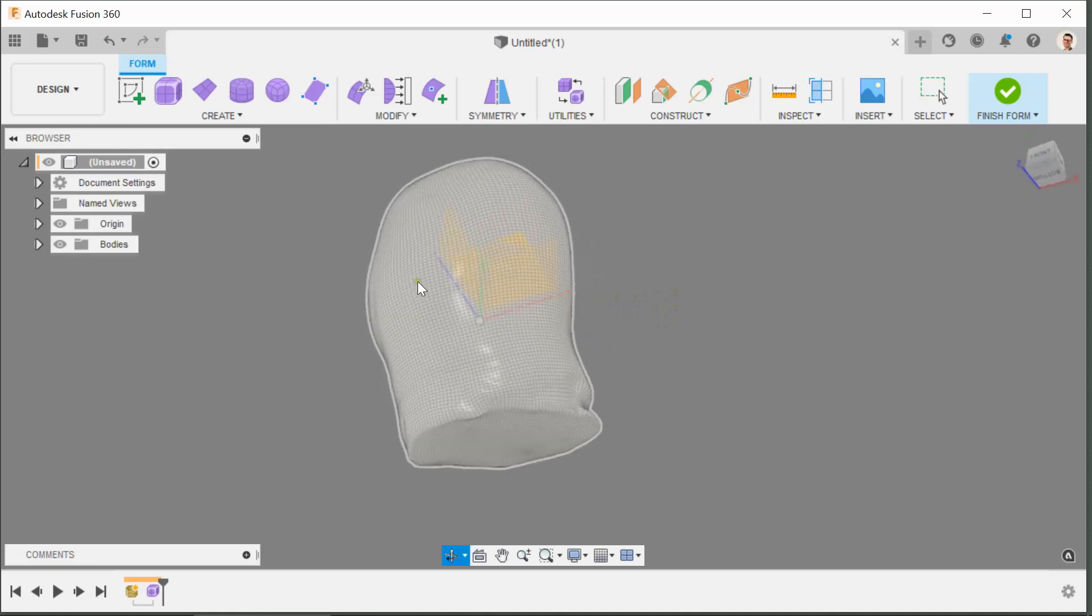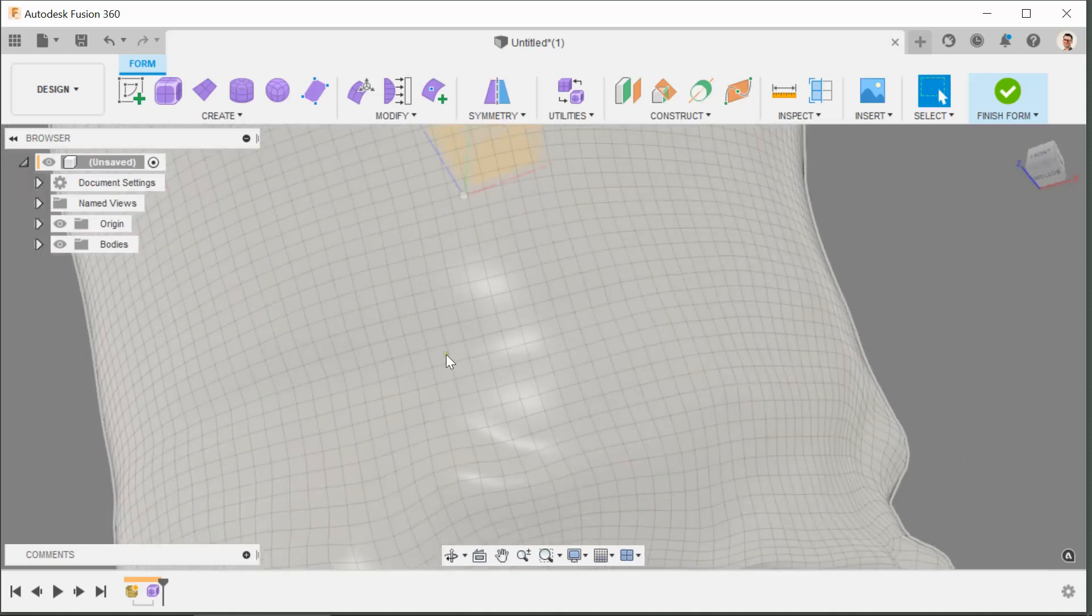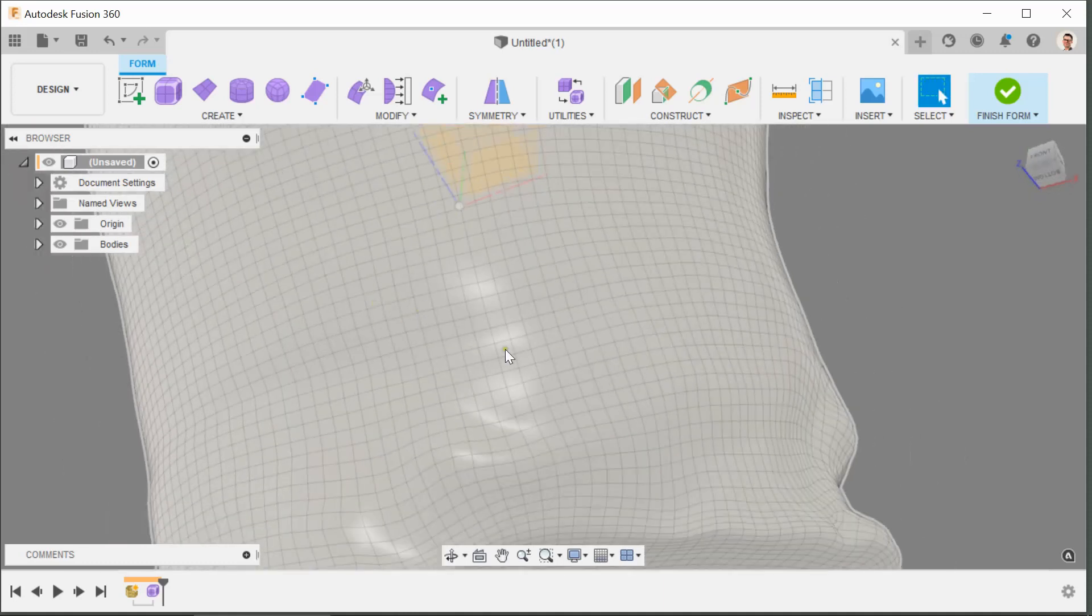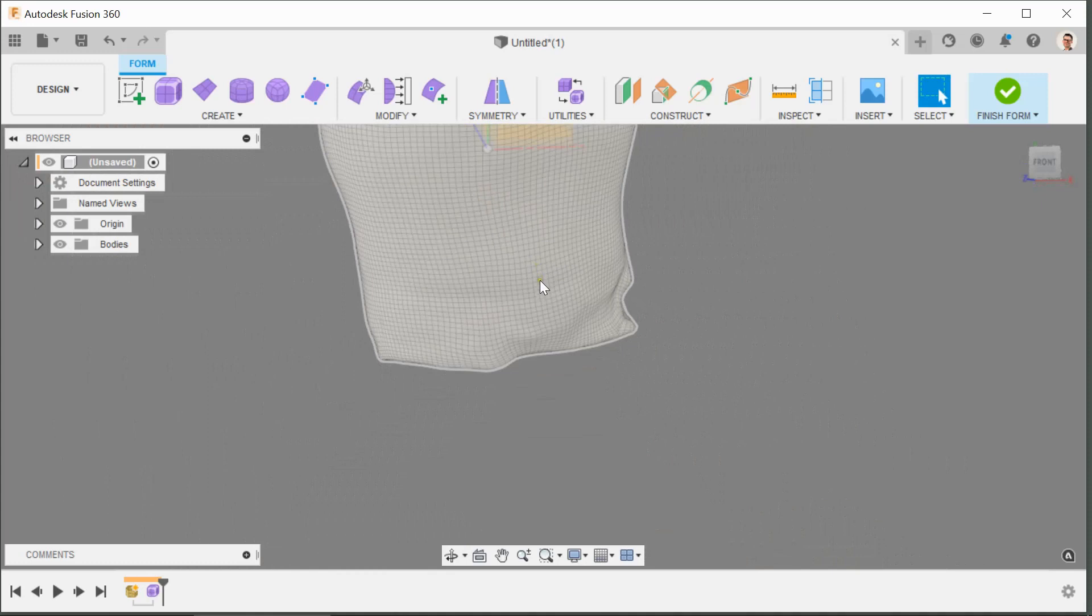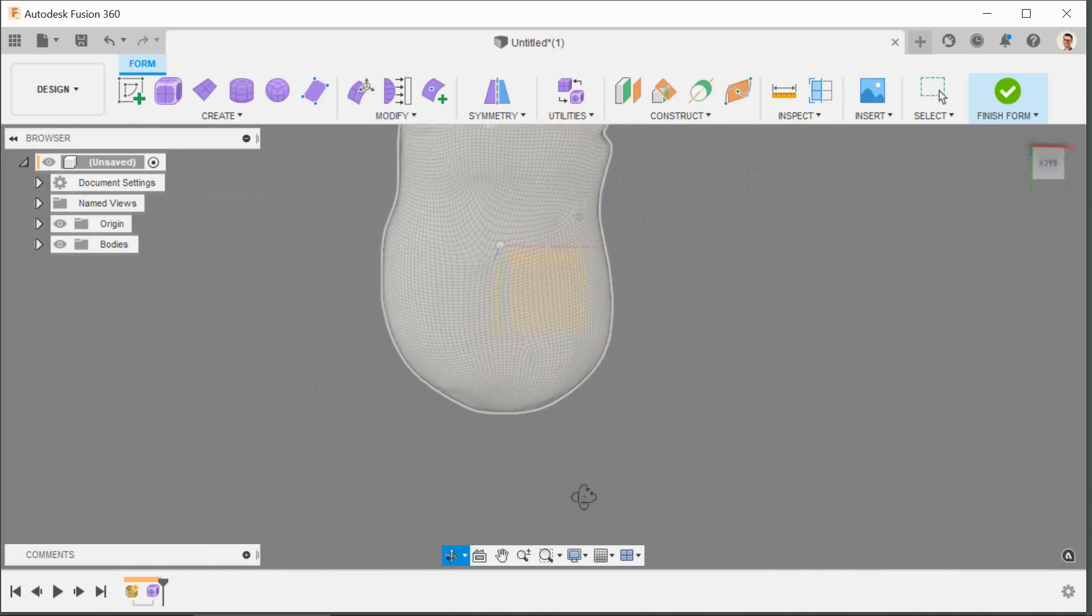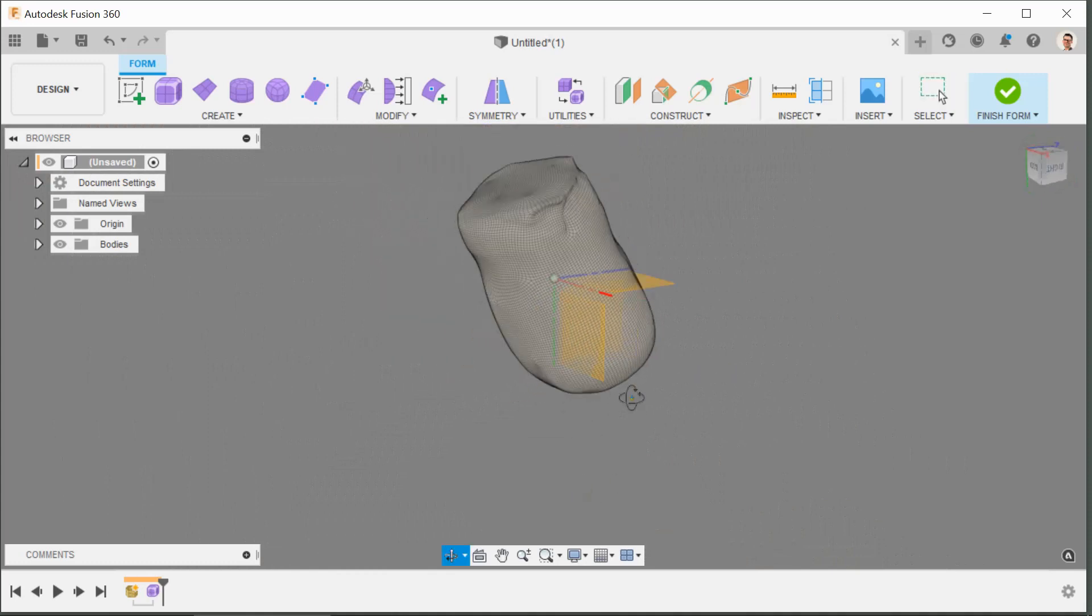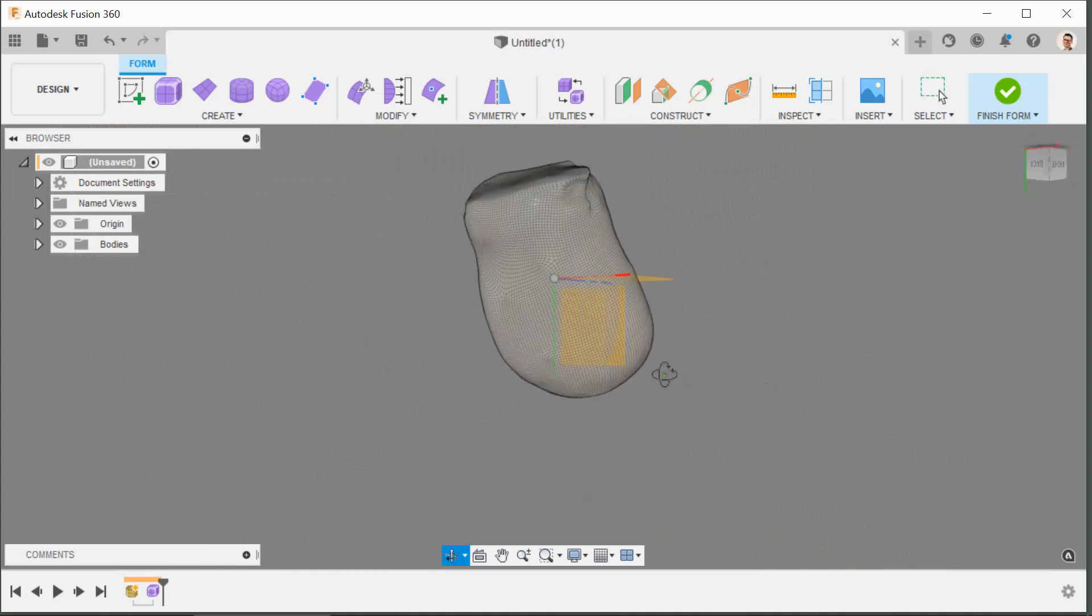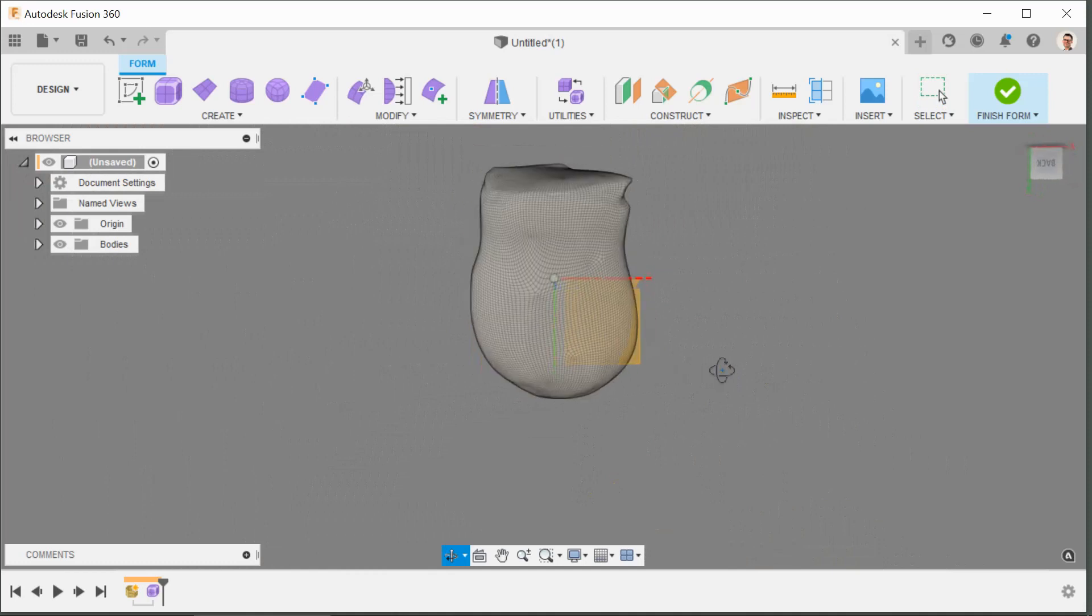At the moment it regards it as a mesh which is a set of interlaced quadrangles. Now because it's a quad file there should be no triangles in here. The process that we're doing cannot be done if there are triangles. It can be done with one or two, but ideally you want something like N Topology or Autodesk ReCap Photo to convert this into a quad for you.